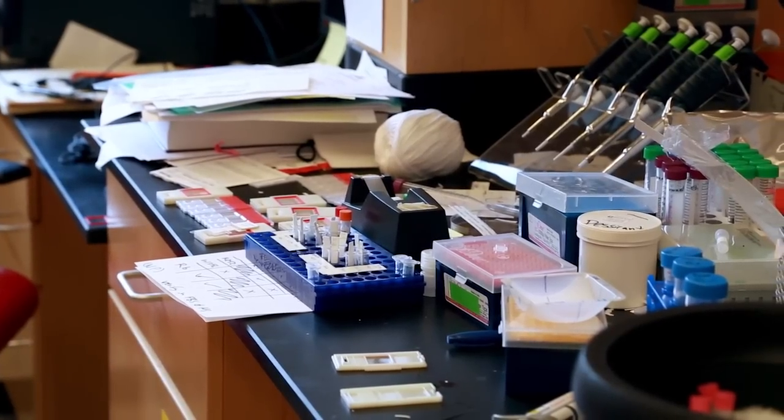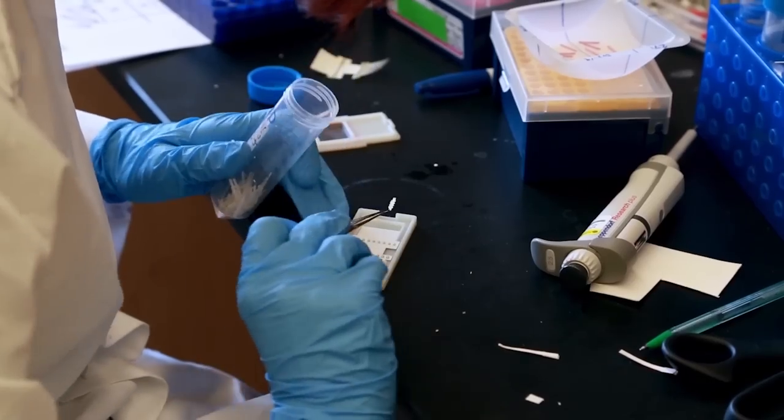Test kits have already been sent out on a small scale, and the team hopes for a large-scale distribution within a year.